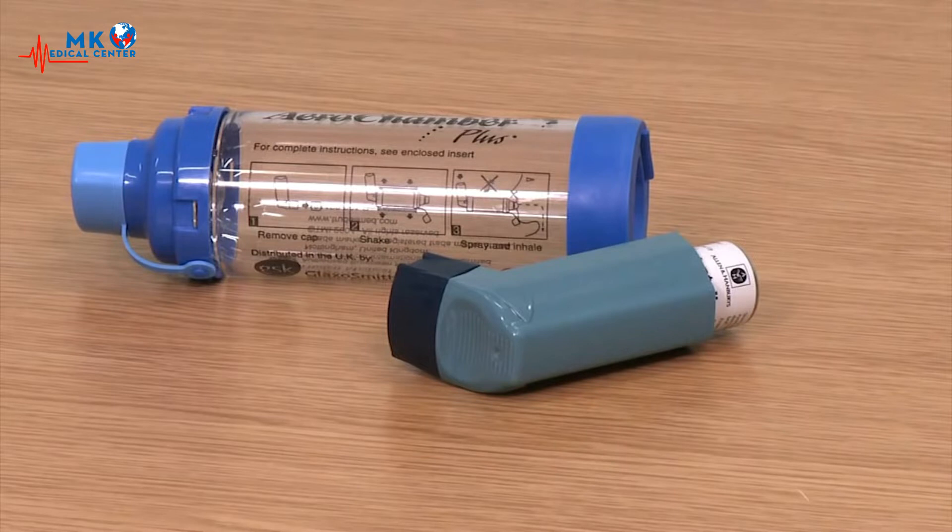For other inhalers, see the manufacturer's instructions. As before, introduce yourself, correctly identify your patient, explain what you're going to do, and gain consent.